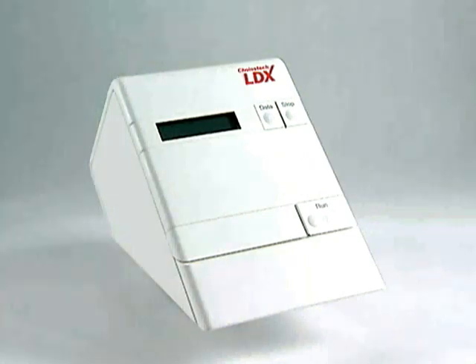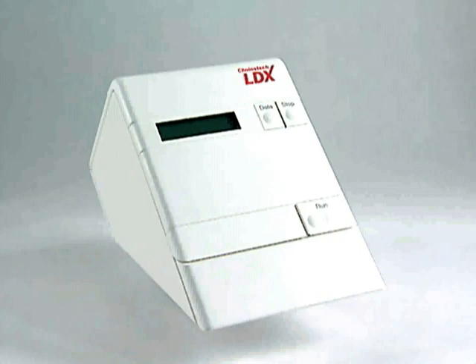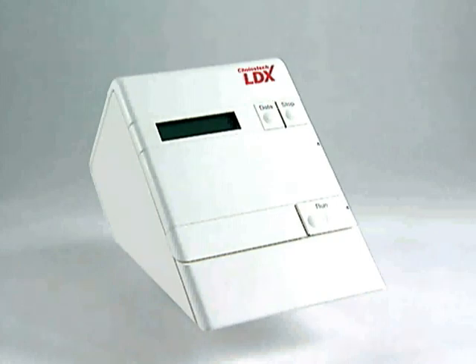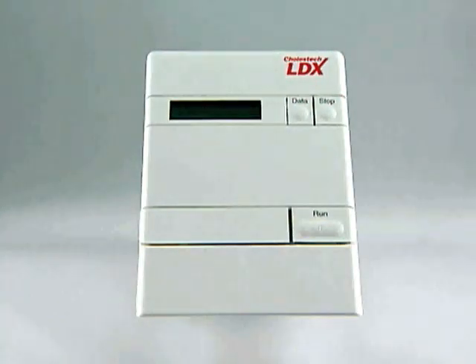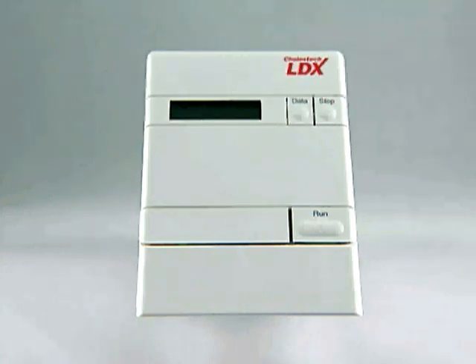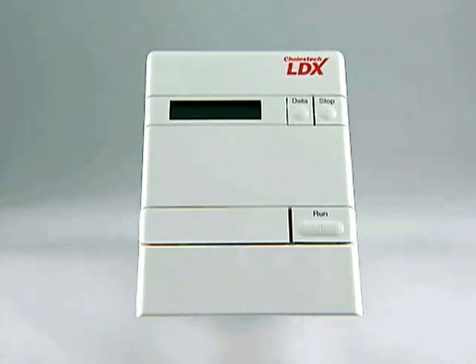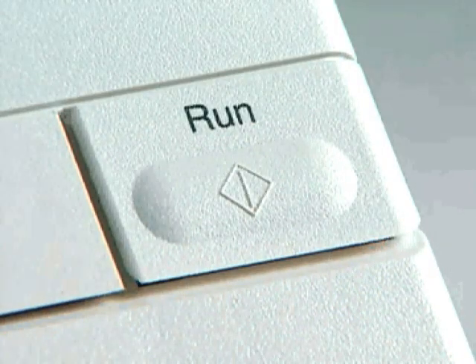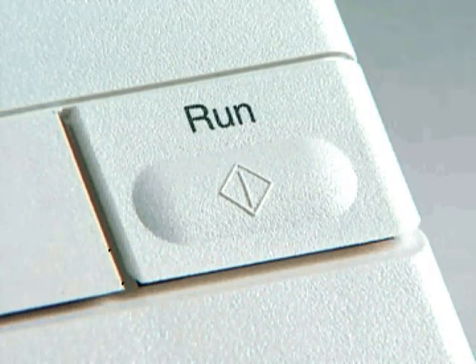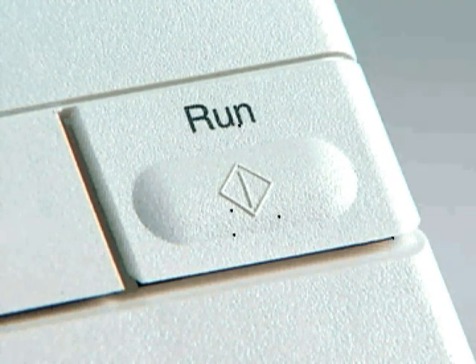The Cholestec LDX System uses reflectance photometry to measure the concentration of blood analytes, such as cholesterol or glucose. The analyzer is very simple to use. By following the instructions on the LCD screen and pressing three buttons, you can easily operate the system. The Run button opens the cassette drawer and starts a test after the cassette is inserted. It also resets the analyzer to prepare for the next test.